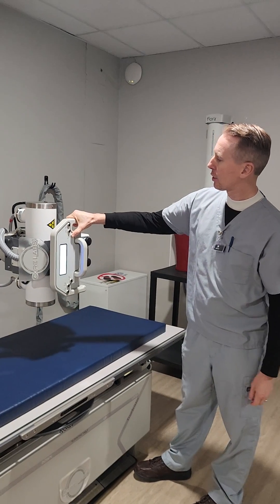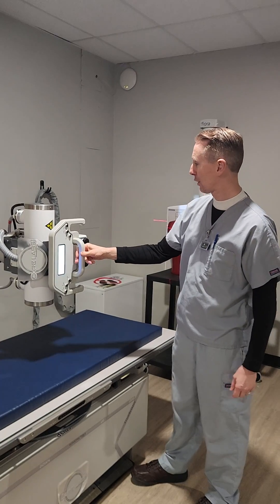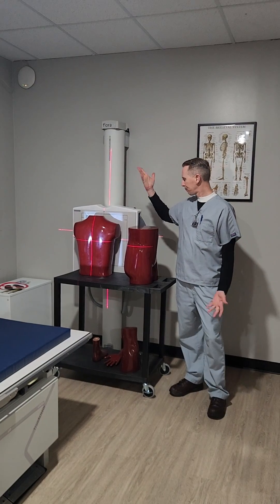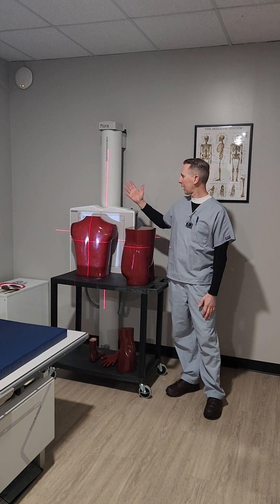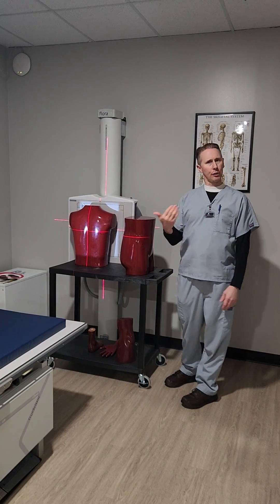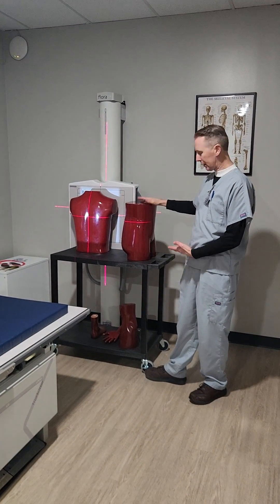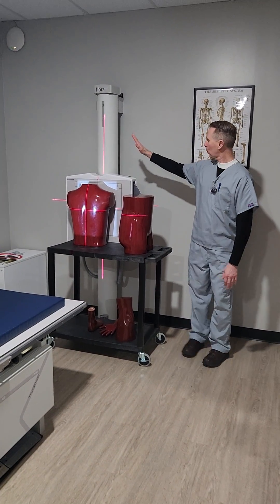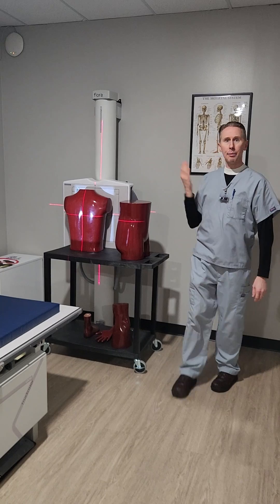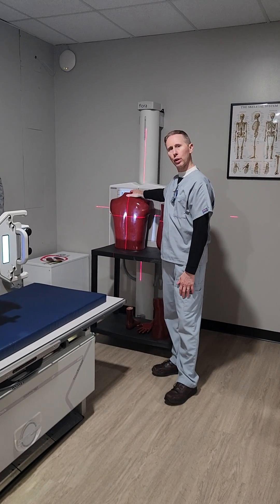Here we're going to demonstrate a chest x-ray, which is a very common x-ray. A lot of people have had a chest x-ray. These are called phantoms — they are inanimate objects that we can x-ray to demonstrate all the anatomical structures that a human has. We can x-ray without giving anyone radiation, since we can't x-ray each other in the classroom. We have an upper torso, pelvis, hands, feet, and knees. And here's what we call our wall bucky — this is our image receptor that our x-rays interact with to produce an image.